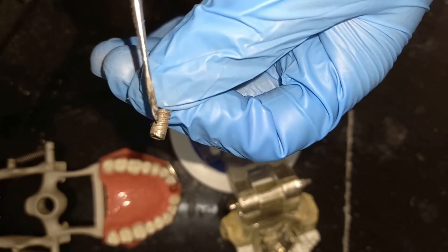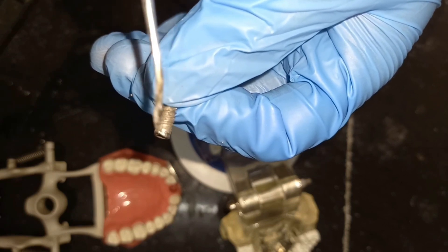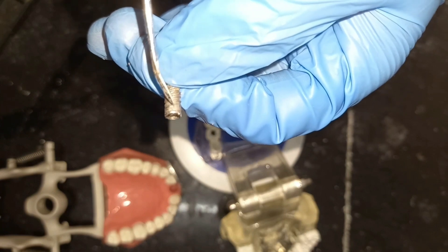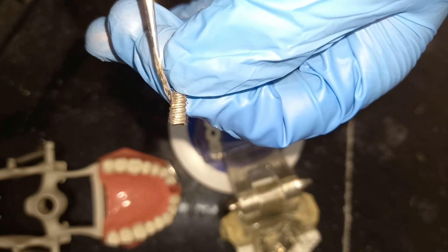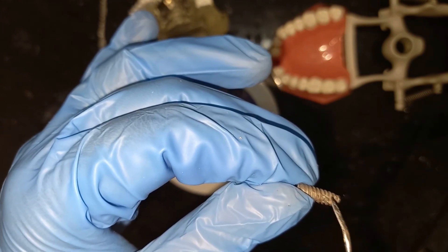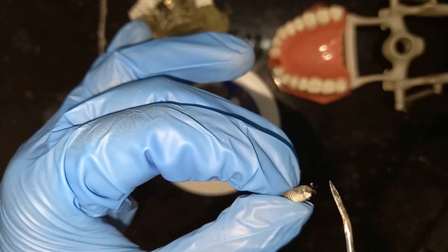The implant itself is divided into three parts. Look at the figure: the upper end of the implant which is smooth is called the crest module. The part below the crest module and between the apex and the crest module is called the body of the implant. The apical part is called the apex, and as you can see, the apex of the implant is not pointed — it is blunt, for a reason I will explain in a later video.